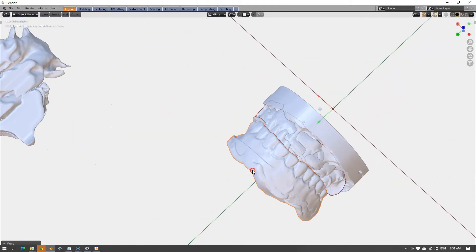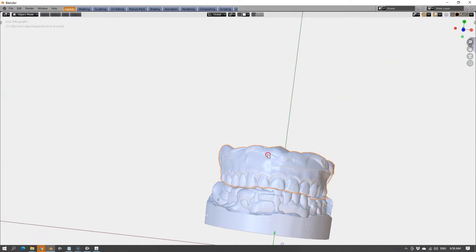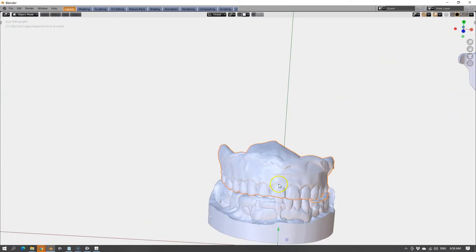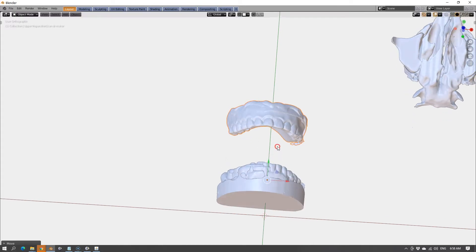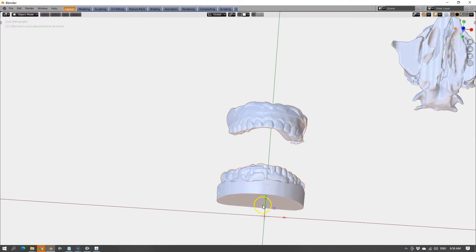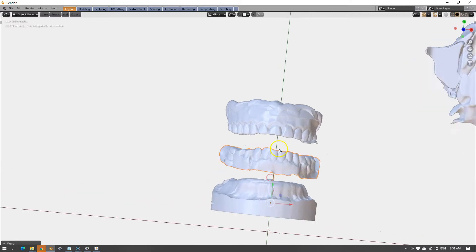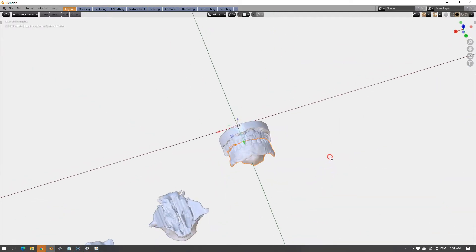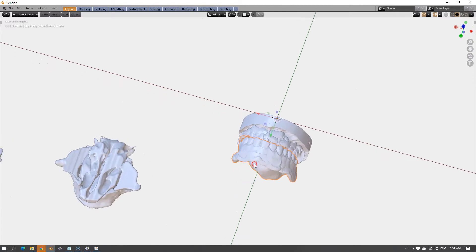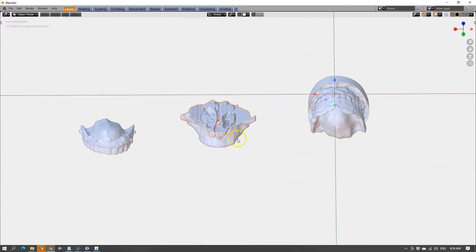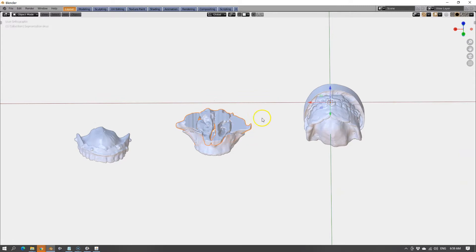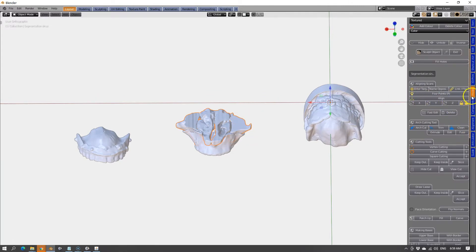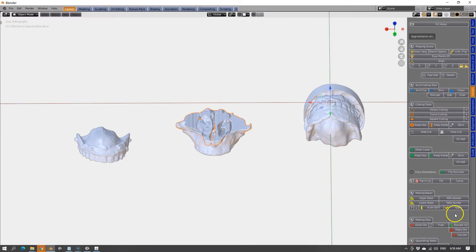So here what we have is another scanned denture. Let's have a look. That's the lower, that's the denture, and that's the upper cast. Alright, we've got all the information to puzzle this thing together now. Note that this is our CBCT, and this is exactly where it needs to stay. I'm going to lock these in place — that's the first thing I'm going to do, so we cannot move these things at all.